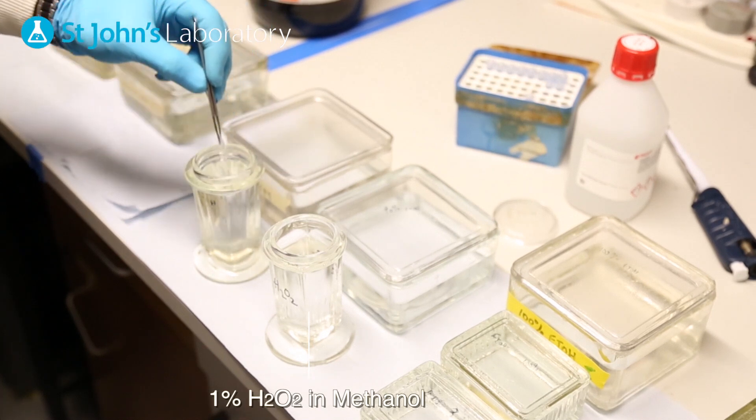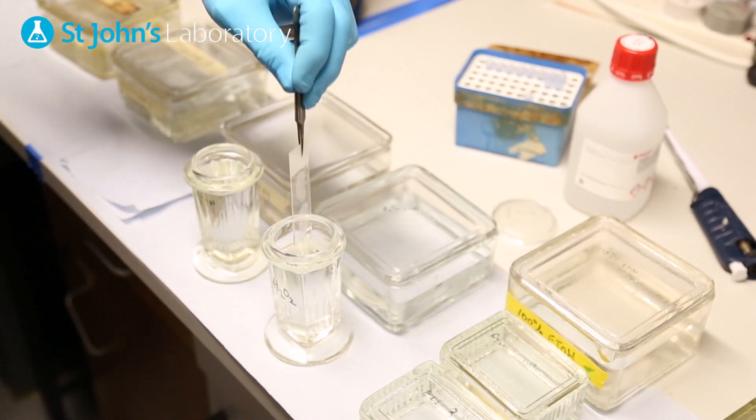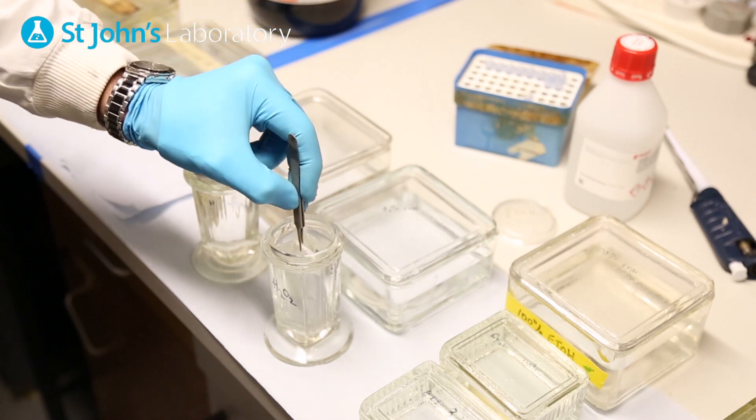After a brief alcohol submergence, transfer the slide to the prepared hydrogen peroxide solution and incubate for 10 minutes.